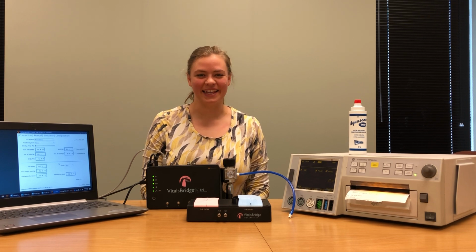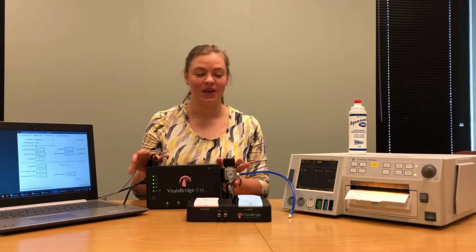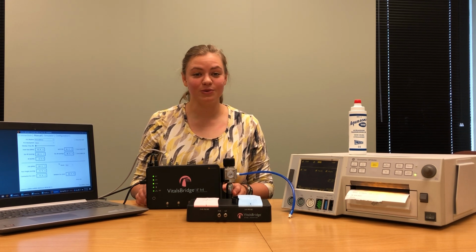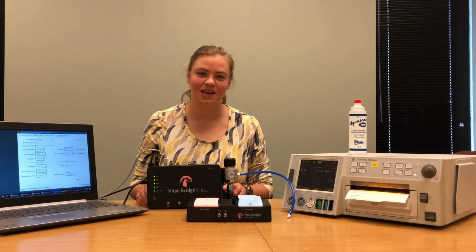Hi, my name is Haley, and today I'm going to be showing you how to connect your VitalsBridge FM to a GE fetal monitoring system. The connections that I show you how to make in this video can also be used to help you connect your VitalsBridge FM to most fetal monitoring systems, as the connections are very similar.